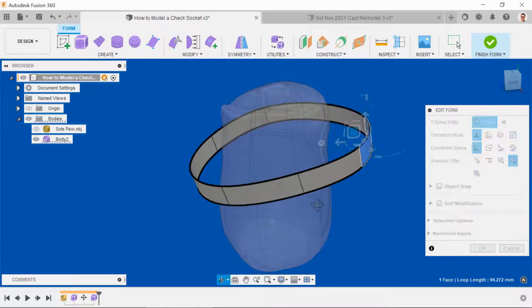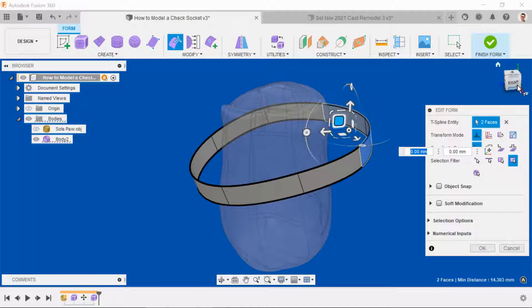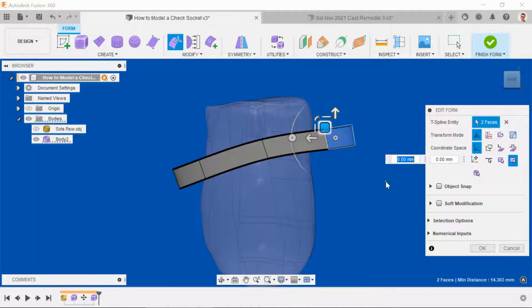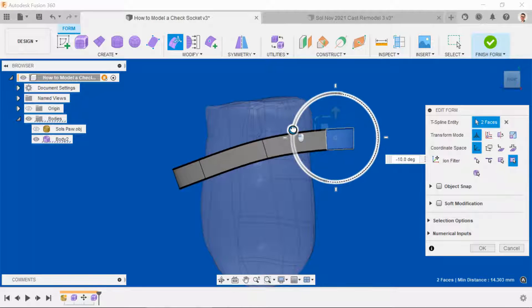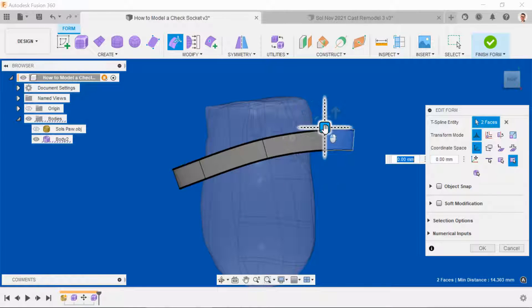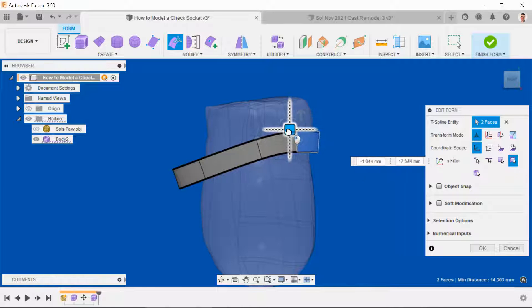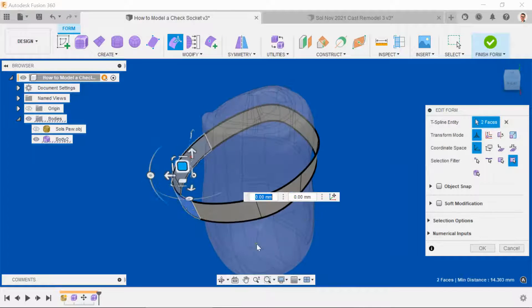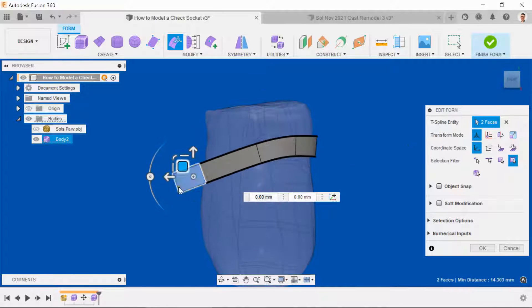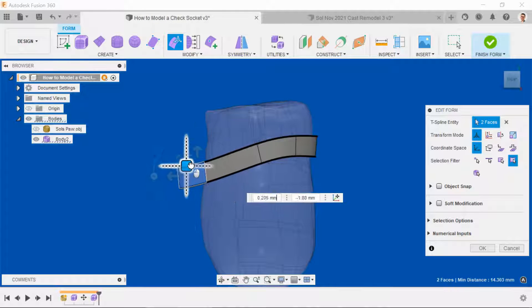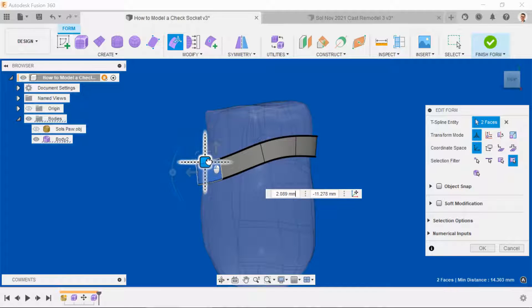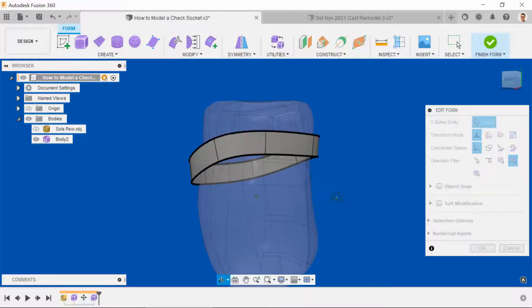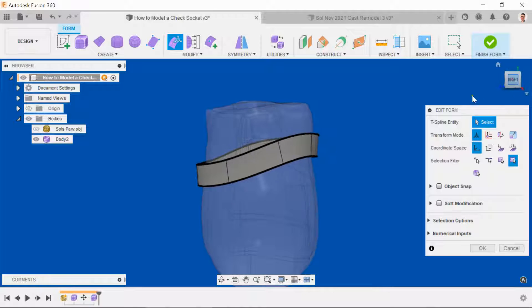Now working to the back, select these two faces. Then working to the front, do the same thing. That's about right for the first step.